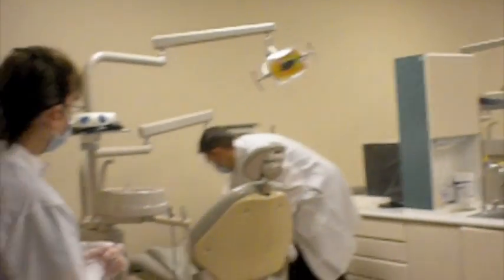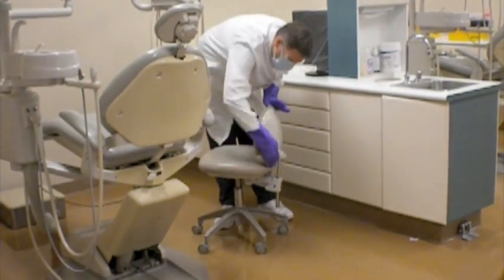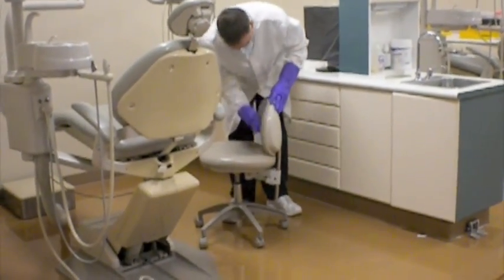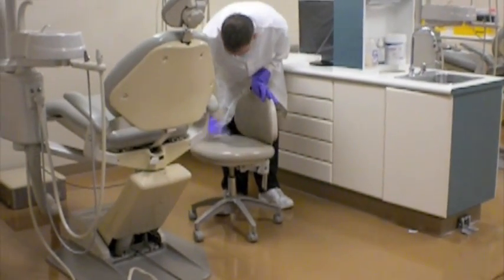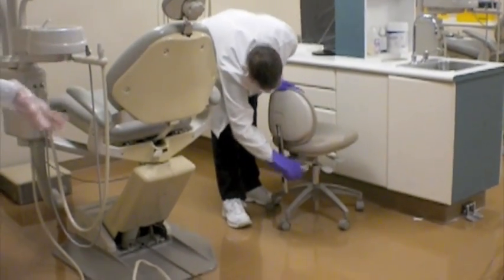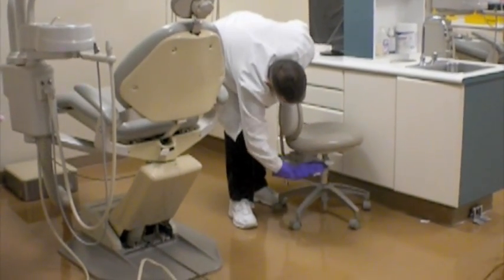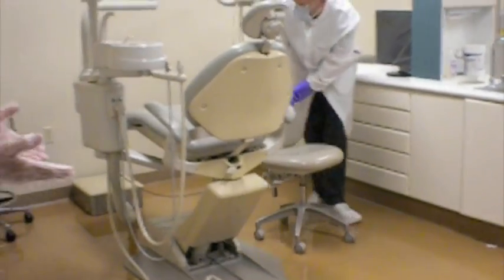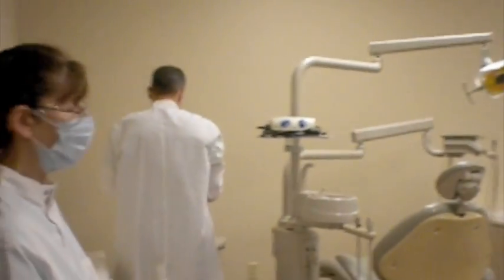So the operator's stool, then, he would start with the top of the back of the stool and wipe that from the top to bottom motion, the front and the back of it, including that back pole and lever. So the seat of the chair, the top of it, the sides of it, the back pole, the lever there, and underneath the adjustable paddles for each one of the stools, which is where your hands will be when you're adjusting the height of it during patient treatment. So that's considered the top of the unit.